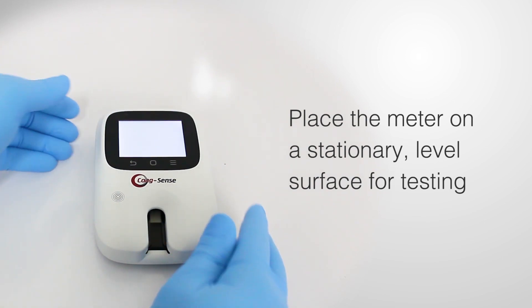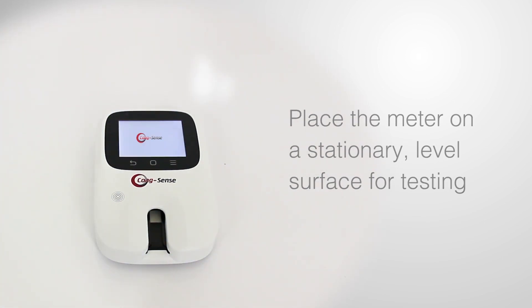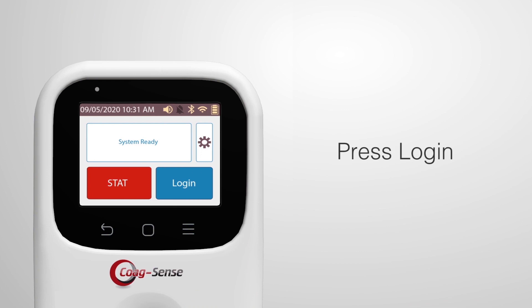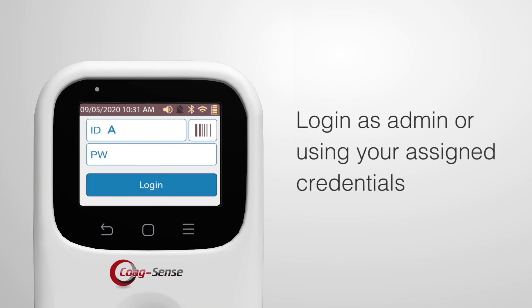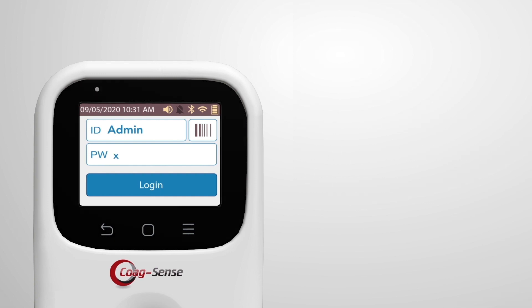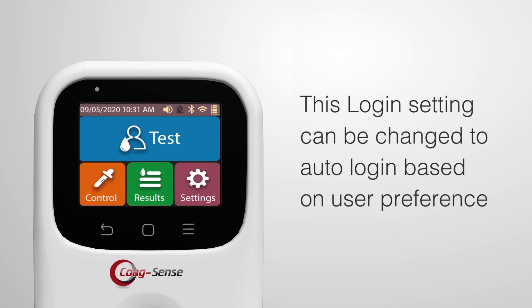To begin, press and hold the power button on the right side of the meter to power it on. Place the meter on a stationary, level surface for testing. When the system finishes starting up, the login screen will be displayed. Log in as admin or using your assigned credentials. This login setting can be changed to auto-login based on user preference.